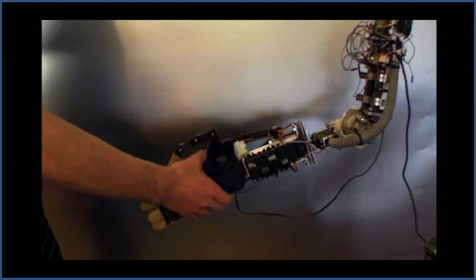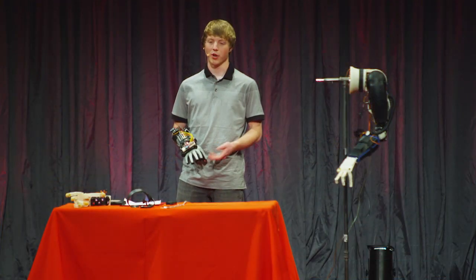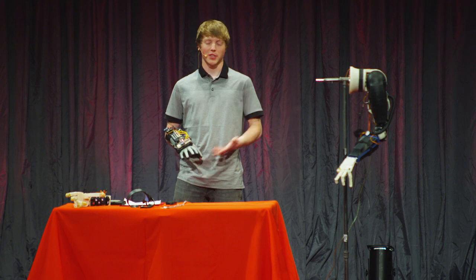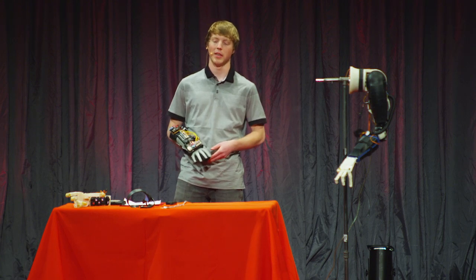I ended up making this full robotic arm up to the shoulder. At the time, I was 16 and didn't have much money—only what I earned working over the summer. That was a challenge, but it really helped me in the end.